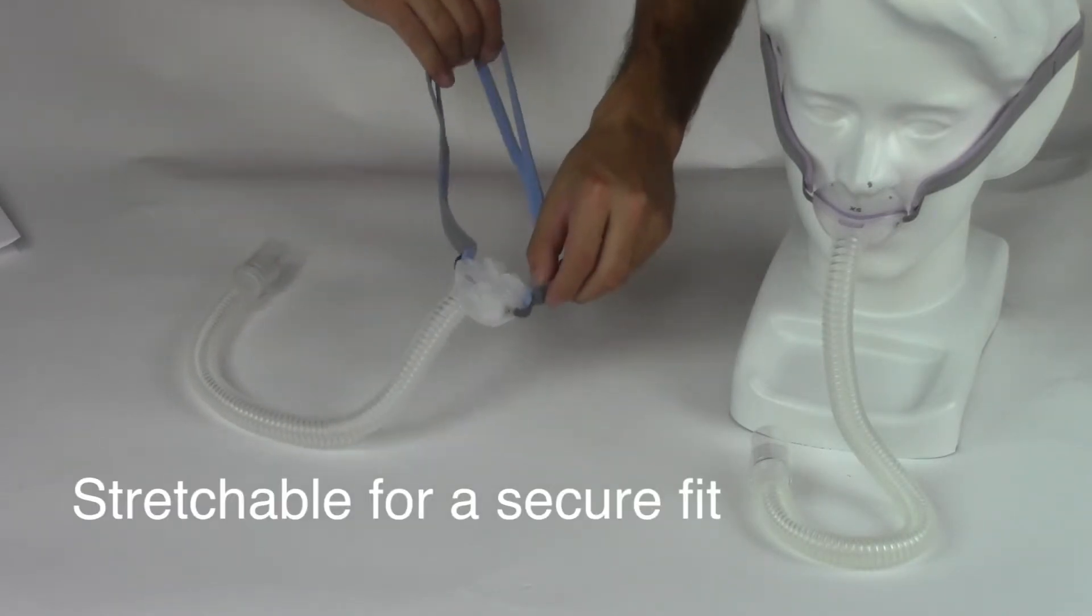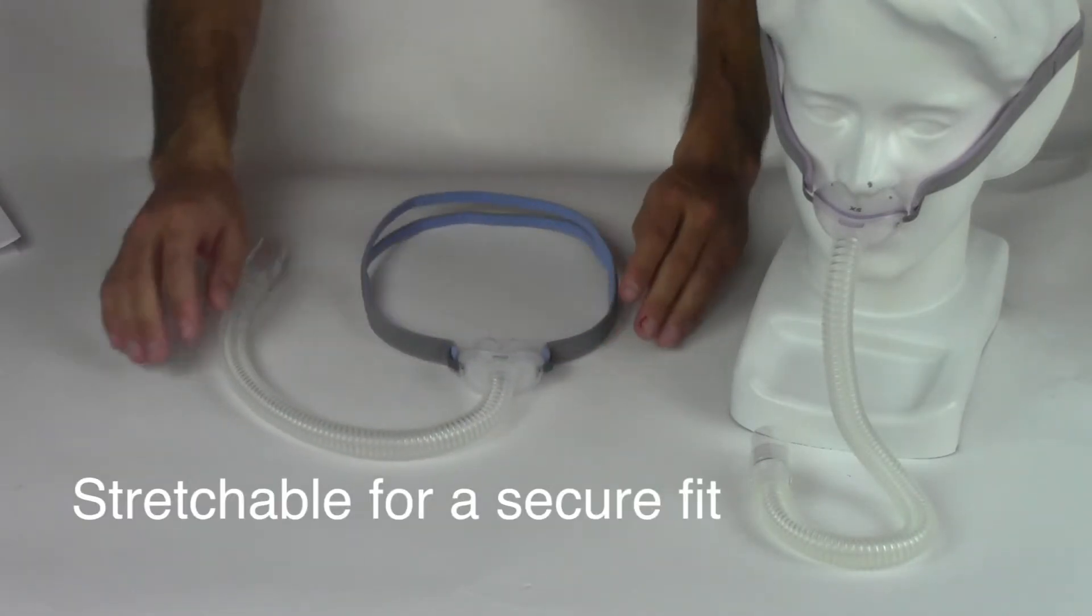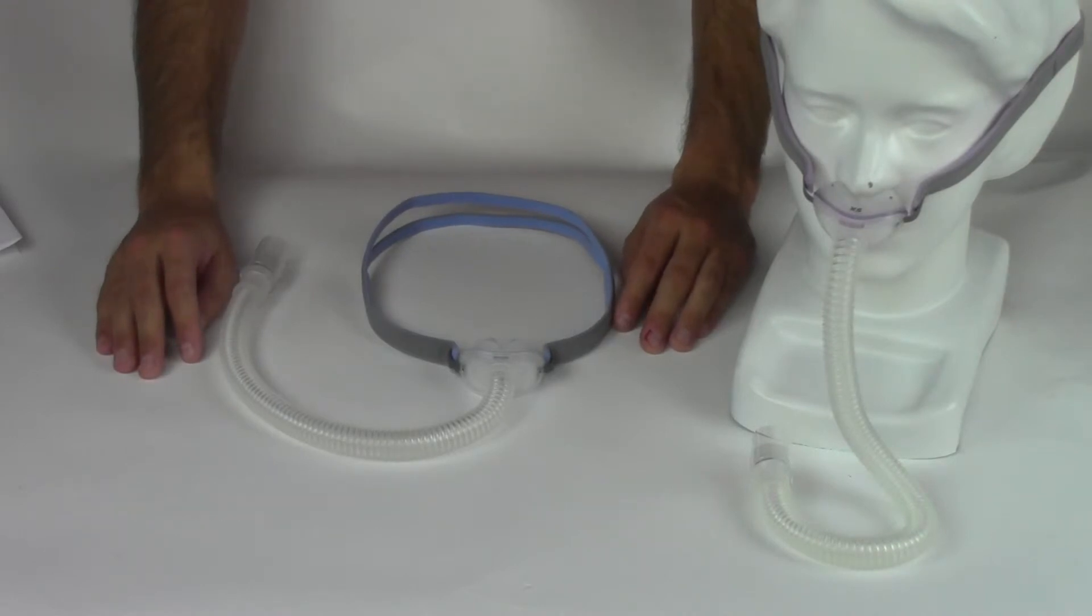It has stretchable headgear which stretches easily to produce a secure and comfortable fit around your head.